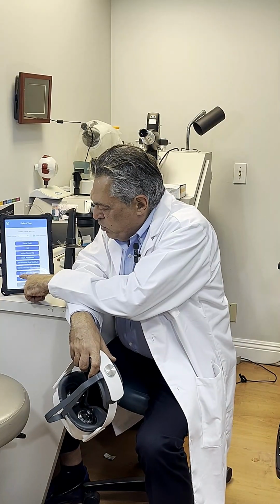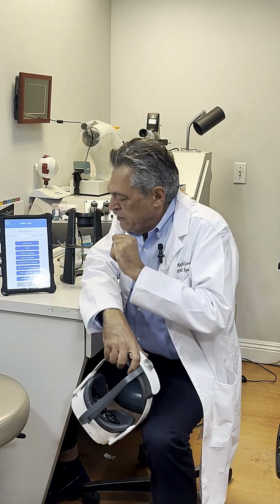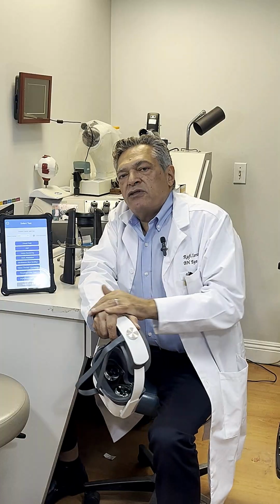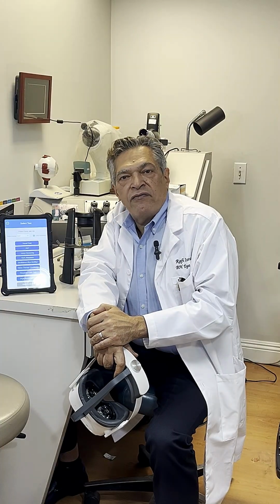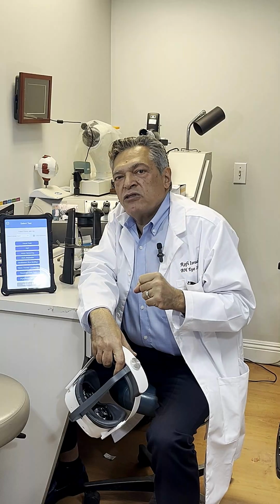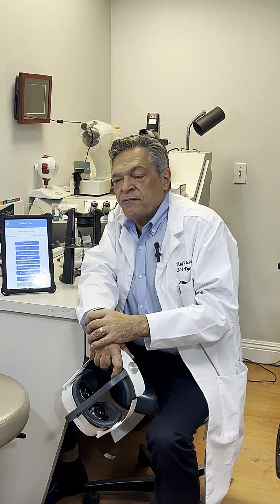There is a threshold color test, which tests each cone, the red, green, and blue cone sensitivity to color individually. And then there is the pupillary response test, which measures the scotopic and photopic pupillary diameter. It measures whether the patient has APD, reverse APD, measures the contraction velocity and contraction acceleration, and offers it in a comprehensive report to the doctor.